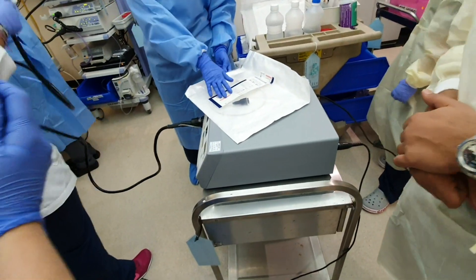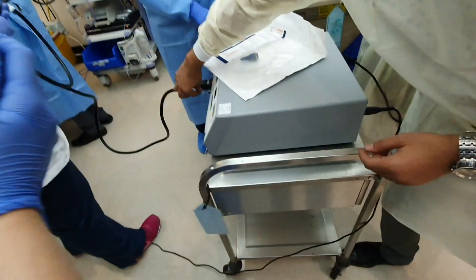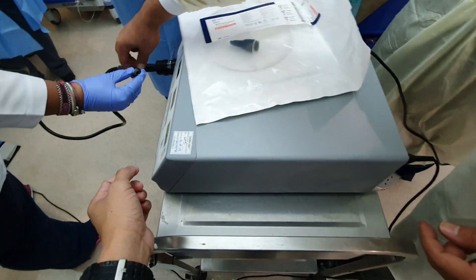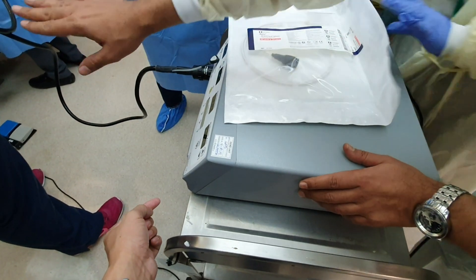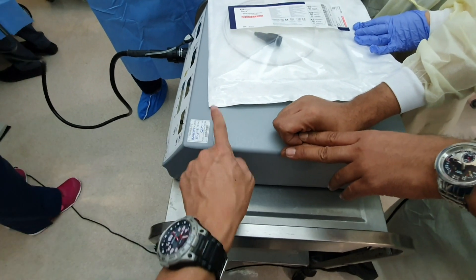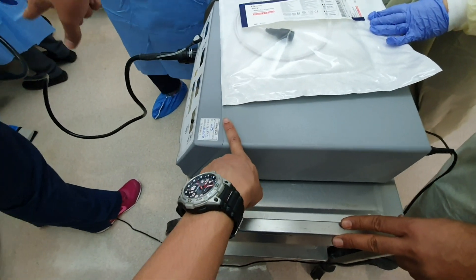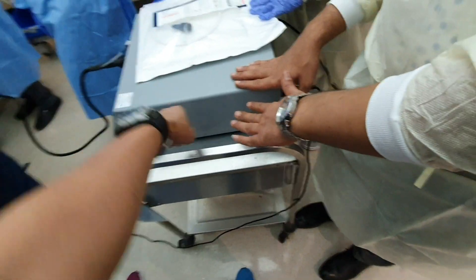The balloon — where does it get the air? If you use the balloon, it comes from this one. The air is coming from the machine. We make inflation from inside the machine — here, this machine, from the switch. But do you have another machine for that? No, it's the same machine.